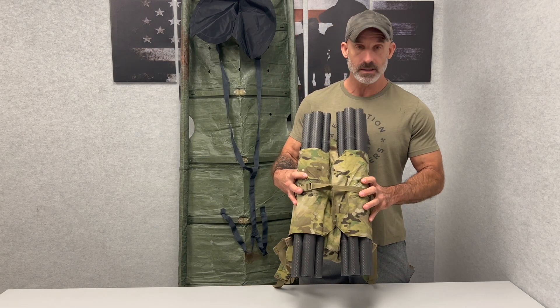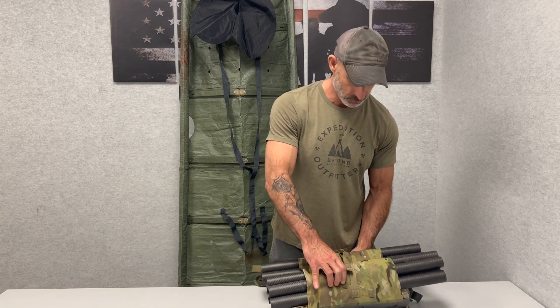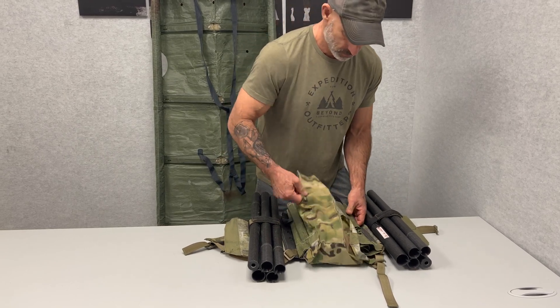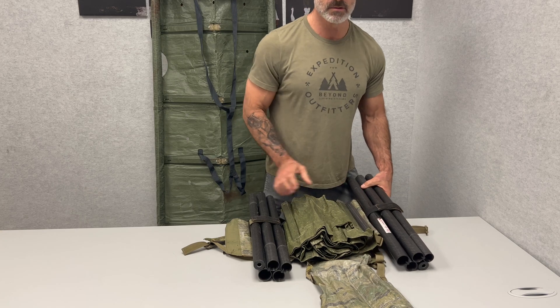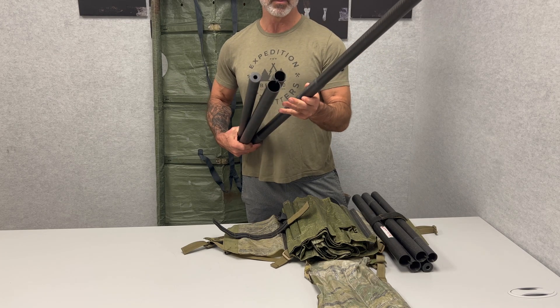The pack comes with a backpack so everything is contained. When I open this up for you, I'm going to pull out the components of the R-Lift — there are three. You can see we have the R-Lift itself rolled up and two carbon fiber poles that I un-Velcro and fit together like tent poles.